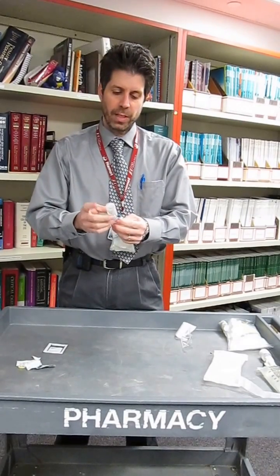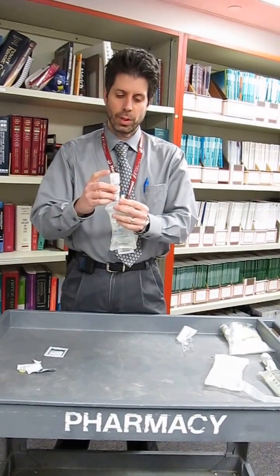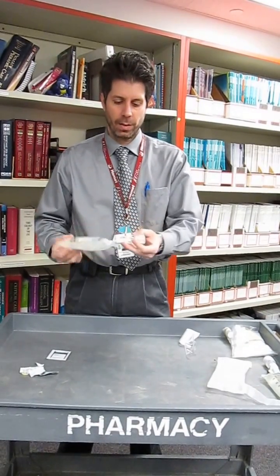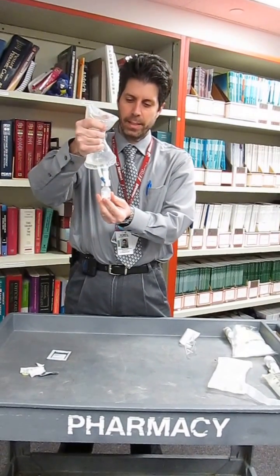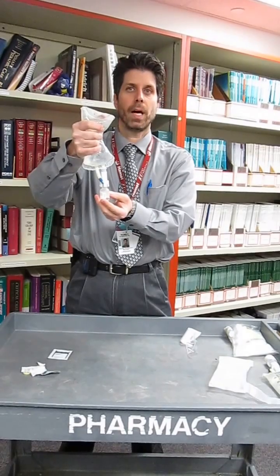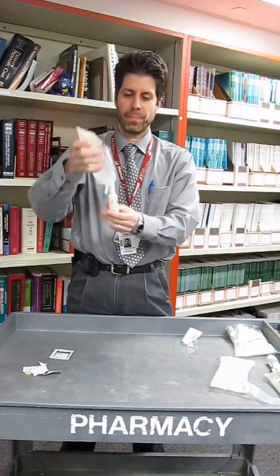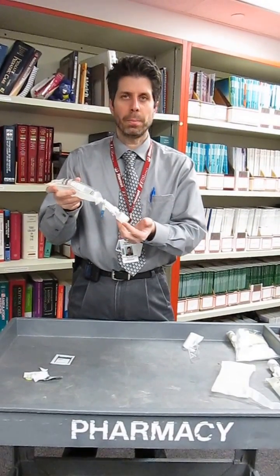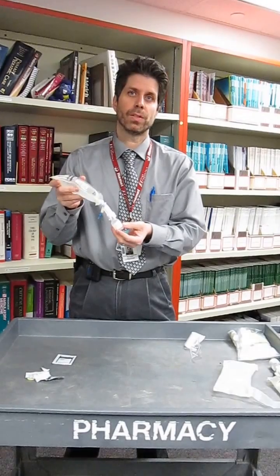For this demonstration I'm actually using a vial that has liquid so you could hold it straight up. If there was powder in this vial then you want to hold it straight down and push until the powder is covered by liquid and you want to shake it and make sure that the whole powder is covered and then you want to actually wait a minute or so until that powder goes into solution.